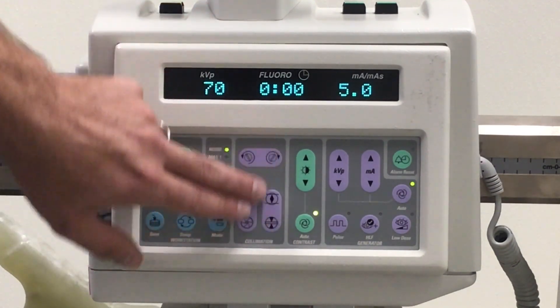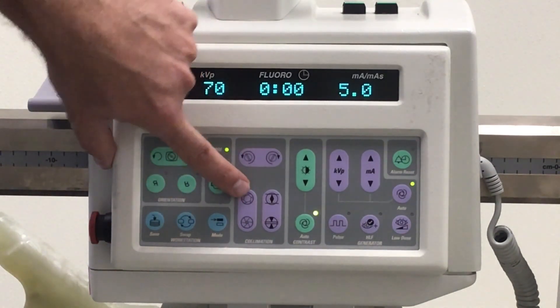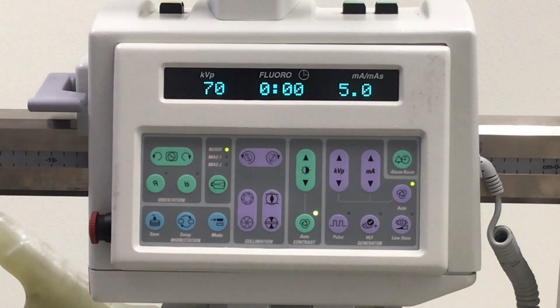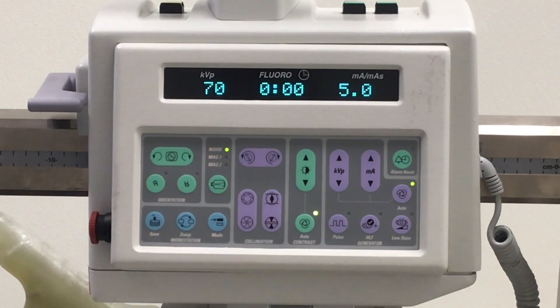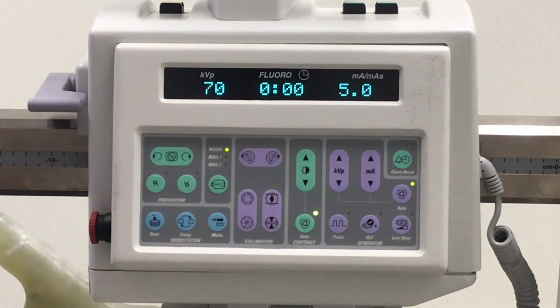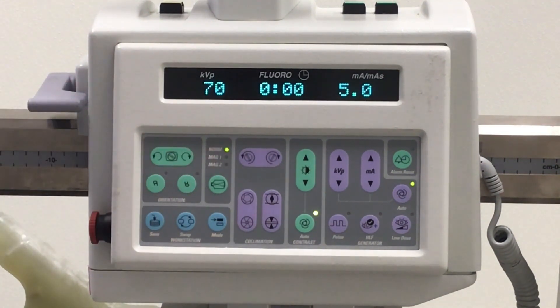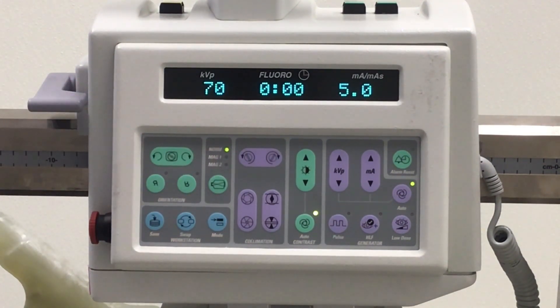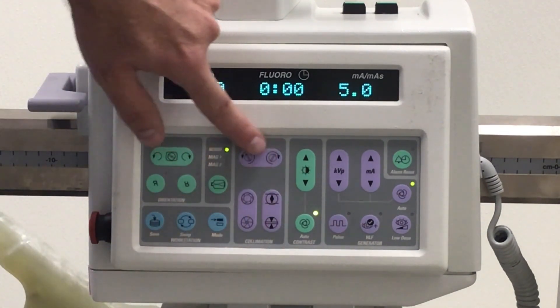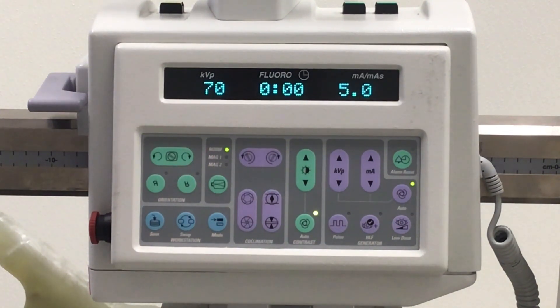These buttons here are our collimators. This one is our iris collimator, which circles in on the actual image. This one is our leaf collimator or shutter collimator, which brings the shutter blades in from side to side. With the shutter collimator you can actually rotate those collimators as you see fit to match the anatomy.